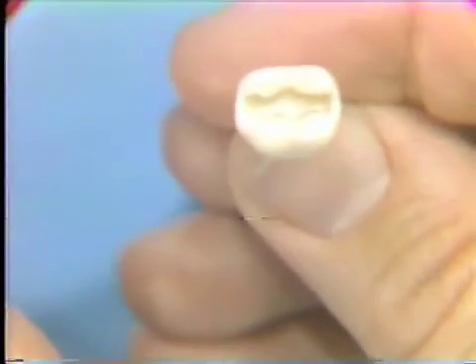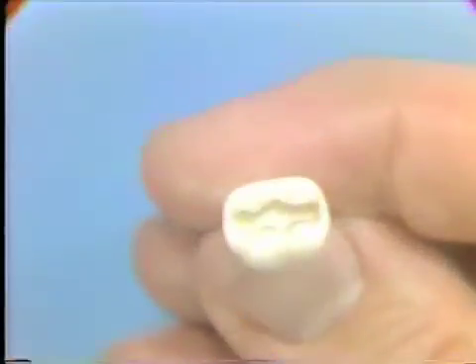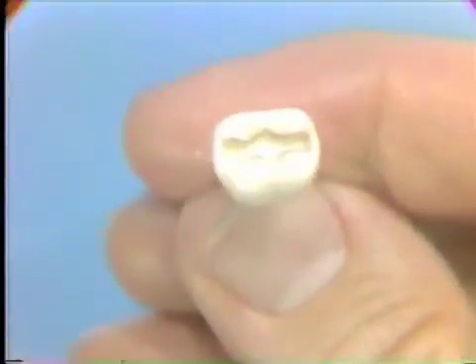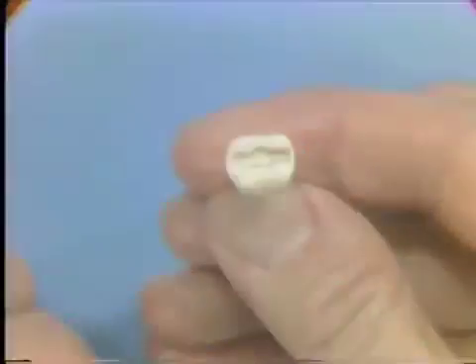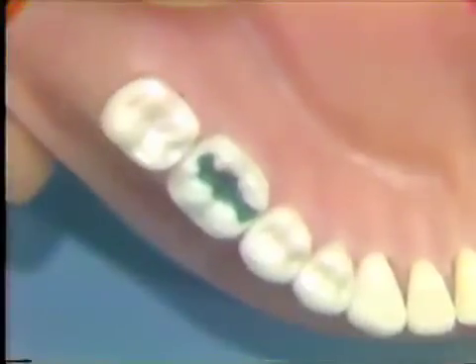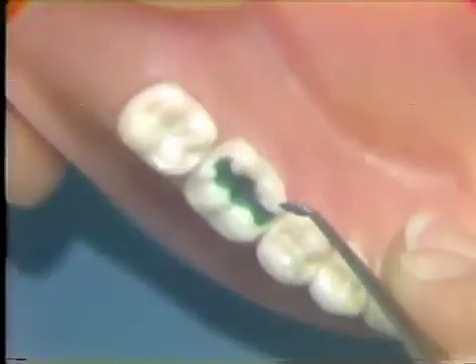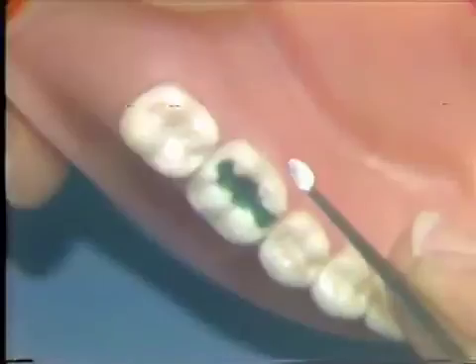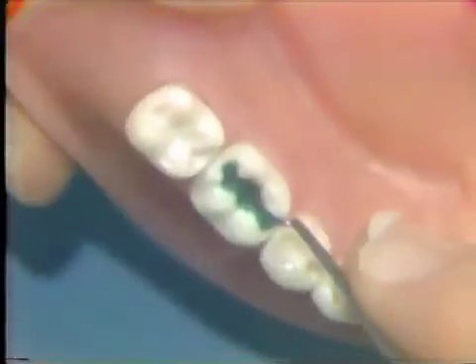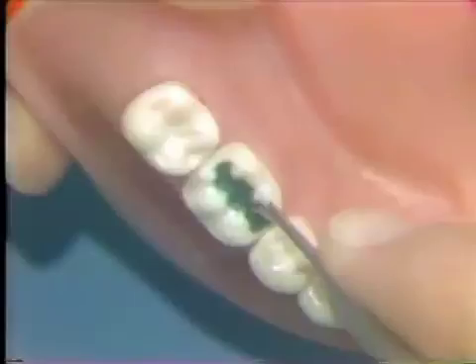Number 30 has been prepared for a class 1 restoration. Mark in the boundaries as I have done with your number 2 pencil. When you have done this, please have your instructors check this. I have added wax off camera so I can show you how to begin carving this tooth into occlusion. For this exercise, I would suggest you use your 5C carver — I would use the cleoid end. Lay part of the carver on the tooth surface and the tip end of the carver into the central groove.